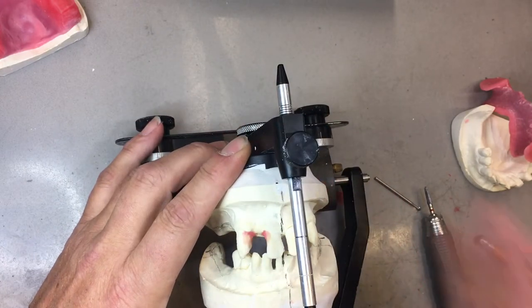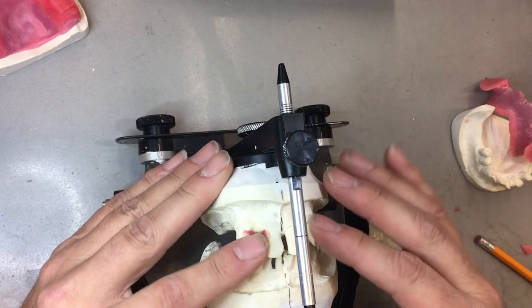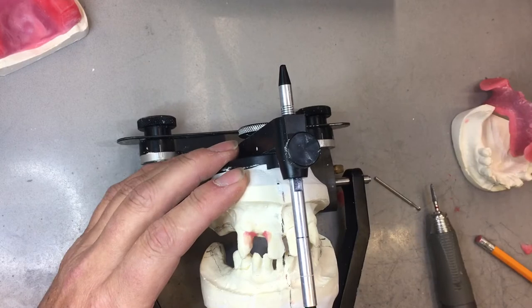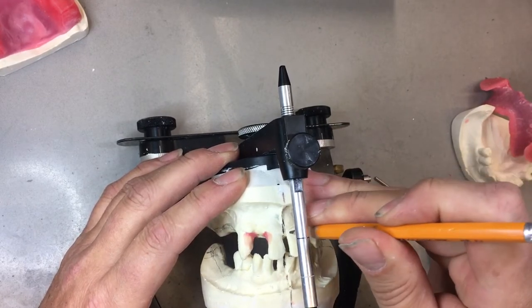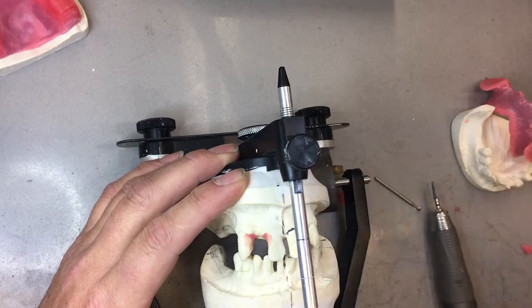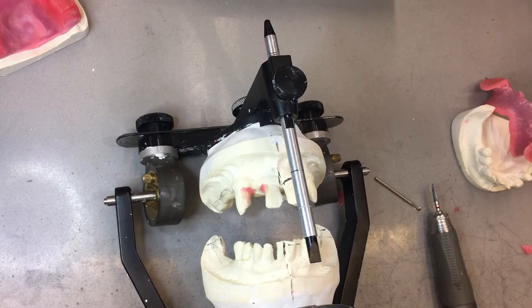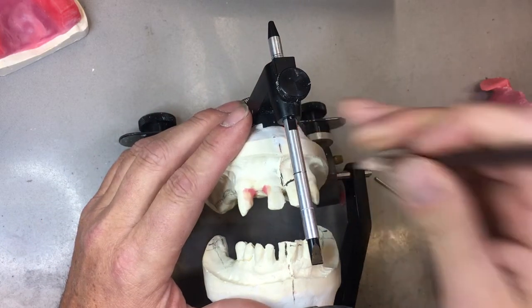I've seen many people do the immediate denture — they just take all the stone teeth off and set the denture. We need to maintain these teeth so we can use them as a reference point of where the patient was and where we're going to put them. The first thing I would start is with this lower central. You can mark the gingival margin, using a red pencil or graphite. On the blackboard there's step-by-step instructions, so you don't need to take any notes — you can revisit later.